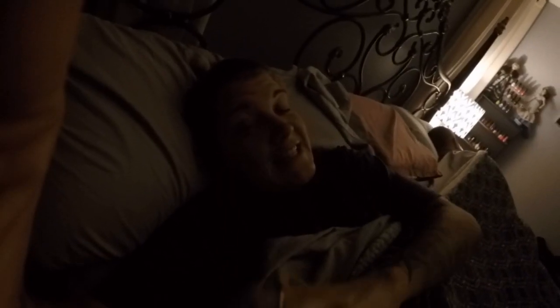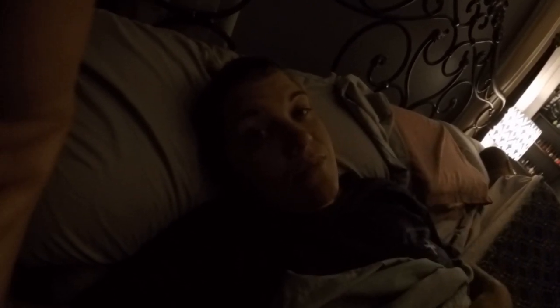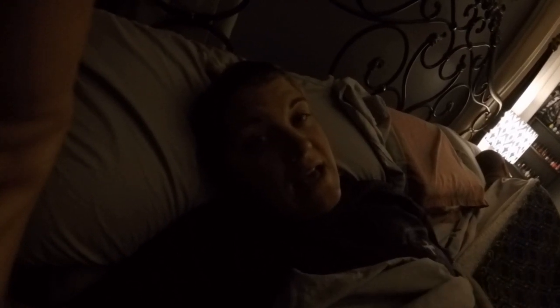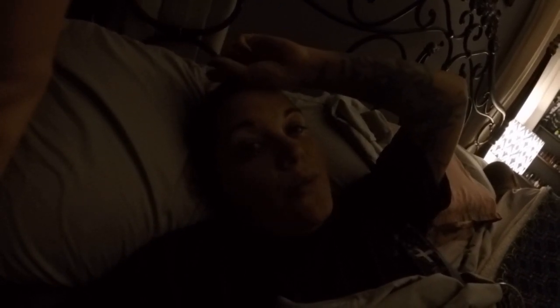It's night three, September 29th, 12:32 AM. I just took my last meter reading — the Dexcom said 115. The Enlite said weak signal. I've been counting every weak signal and it's been a lot today — I stopped counting after 40. My meter said 127, so I calibrated both.